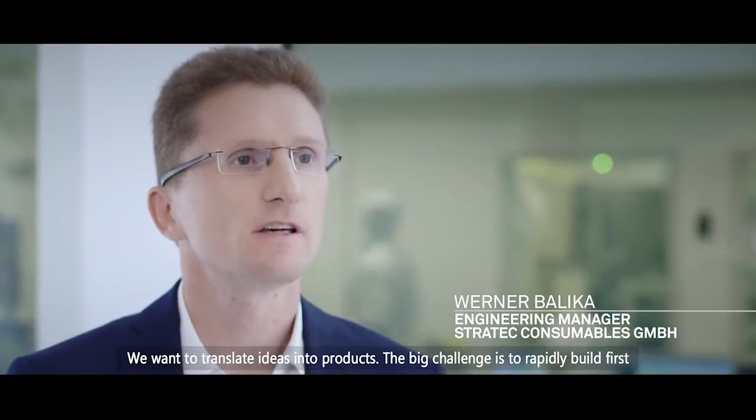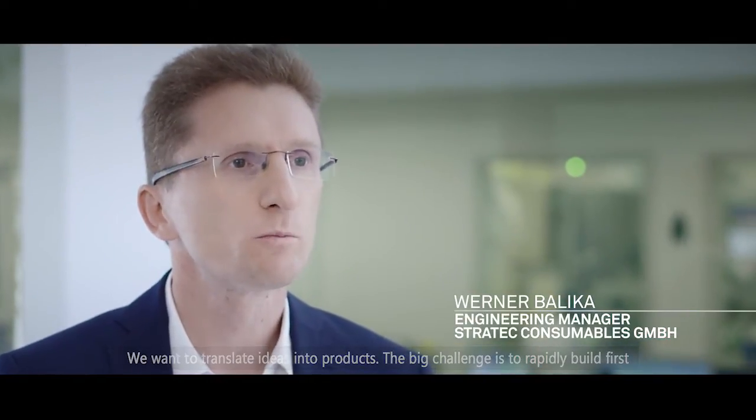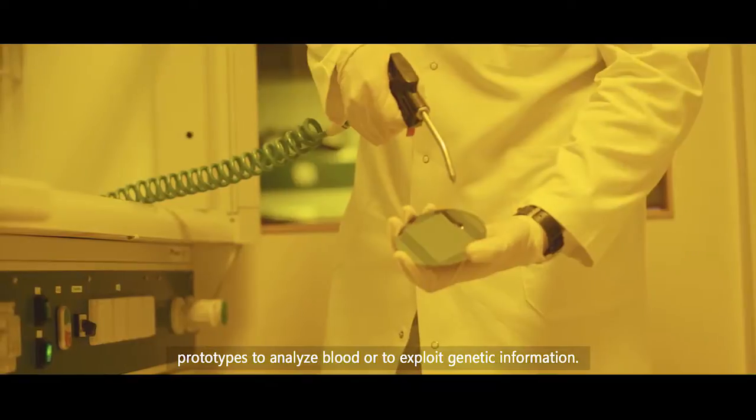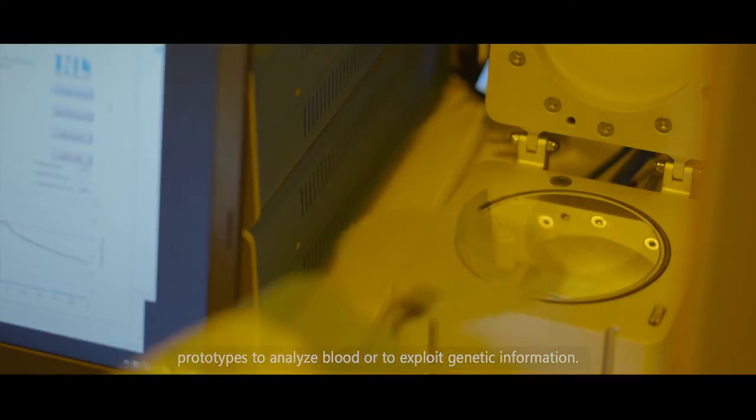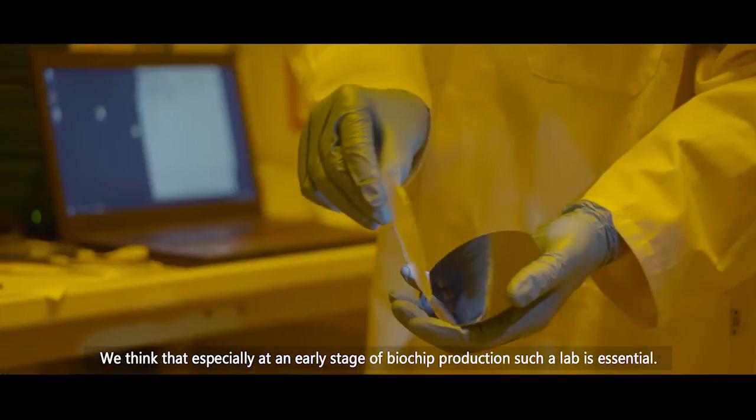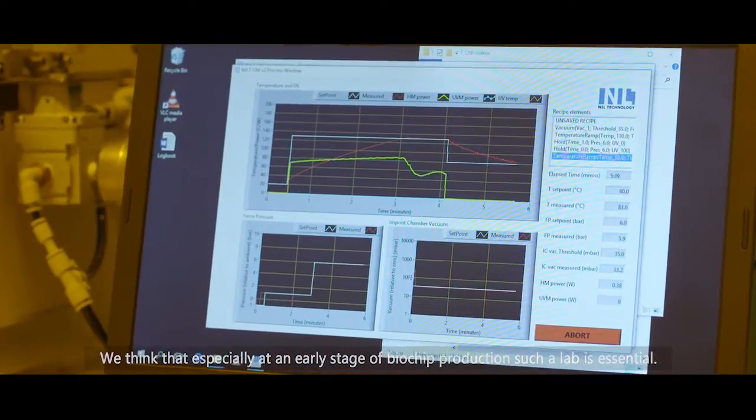The big question is, how do we get to first prototypes for examining blood or our genetic material? We think that for such an early phase in the development of such chips, we need this kind of laboratory.